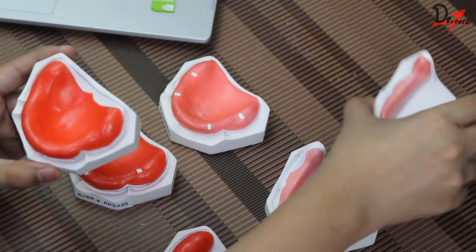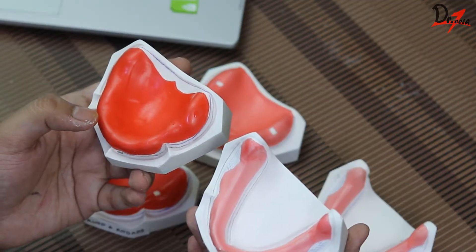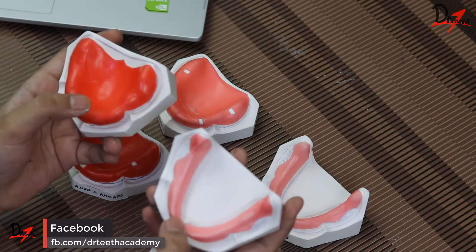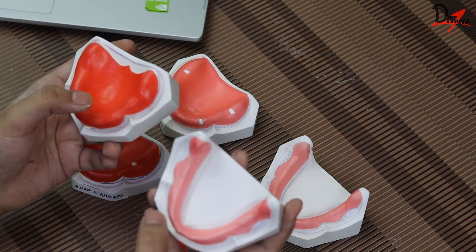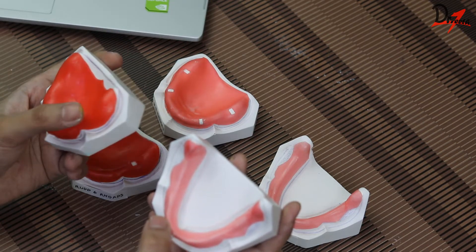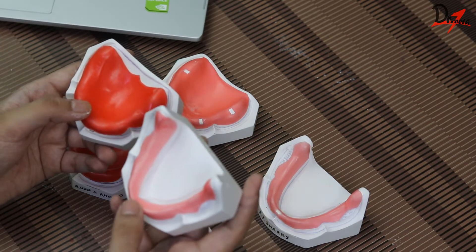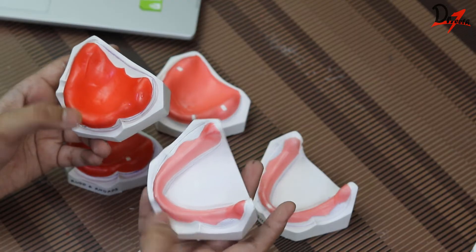The first design is the spacer design by Boucher, which is based on the selective pressure technique. Here you can see a slightly thicker wax on one side — ideally we should use spacer wax which is very thin. According to Boucher, we have to cover the entire basal seat area except the posterior palatal seal for the maxillary arch. And in the mandibular arch, we have to cover all areas except the buccal shelf area, which is left uncovered.